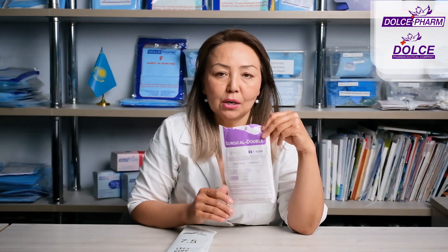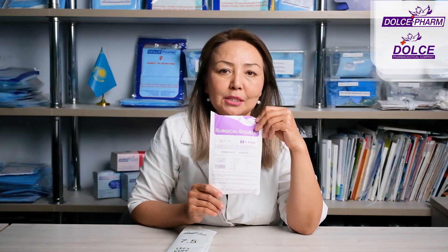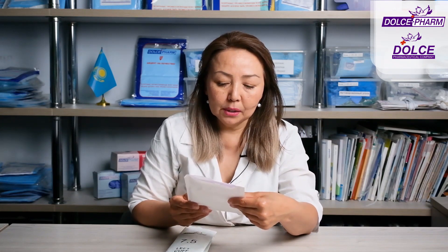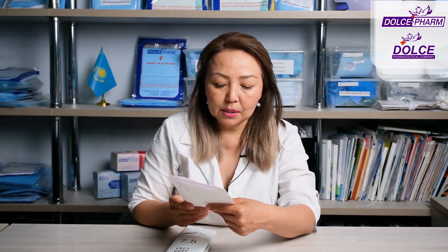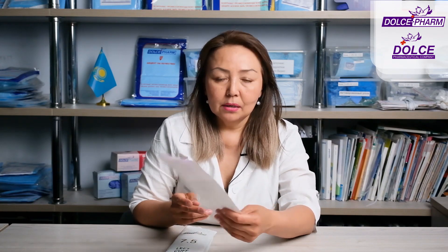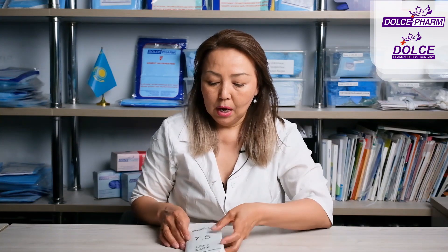This is what the packaging looks like in this case. The packaging for all of our gloves contains the necessary information. Here you can see their number, and it also says that they are double, latex, sterile. Also the size, shelf life, and storage temperature. Sterility is guaranteed if the packaging is intact — make sure the packaging is intact.